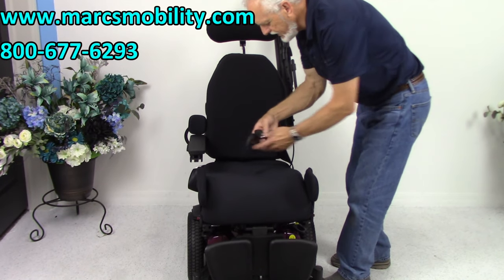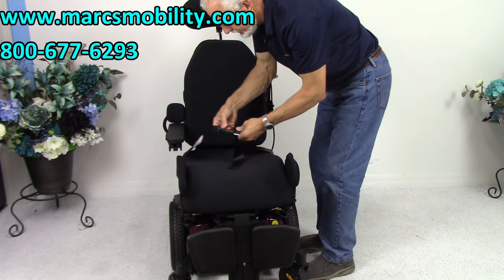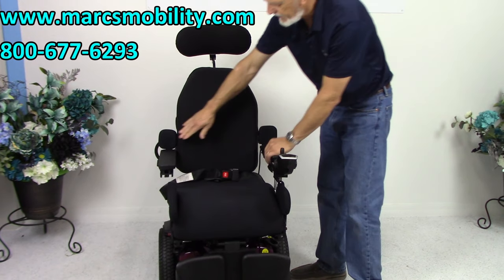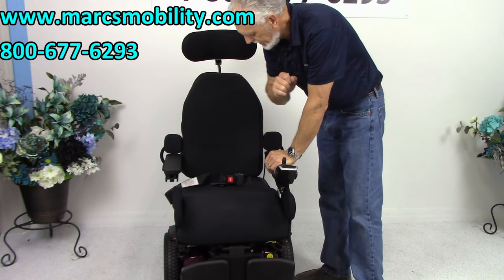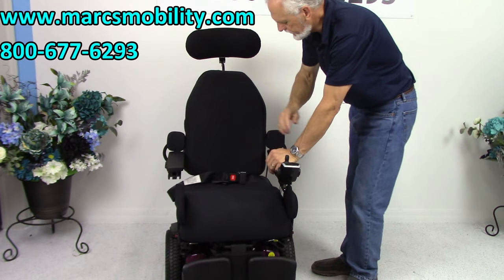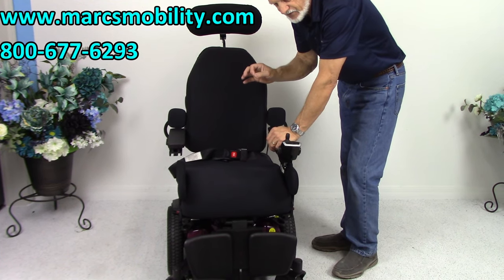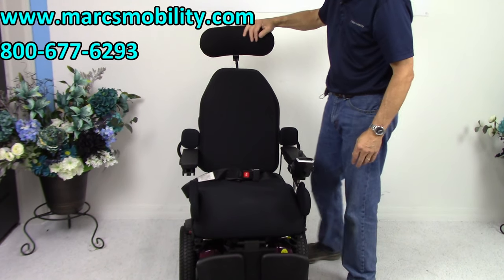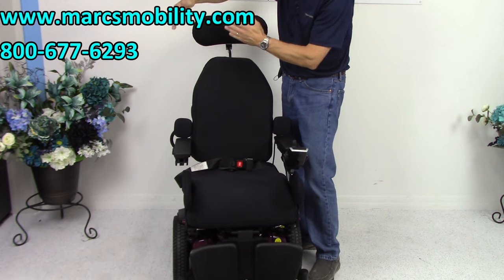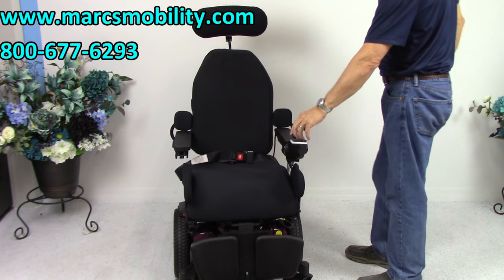You also have your safety belt right here. With this power chair you've got elbow pads — very nice. So if you're tilted back, your arm is not going to slide back because you have elbow pad protection — that's custom. The headrest is also custom. It has a contour so it keeps your head in the middle; your head's not going to bobble to both sides.